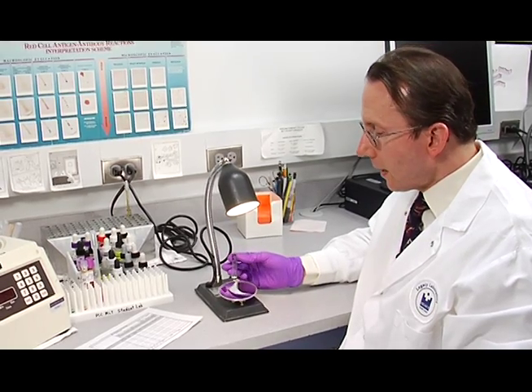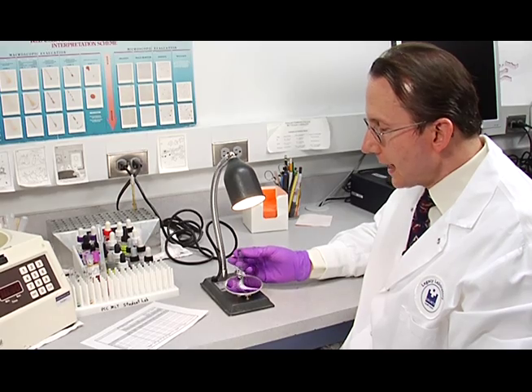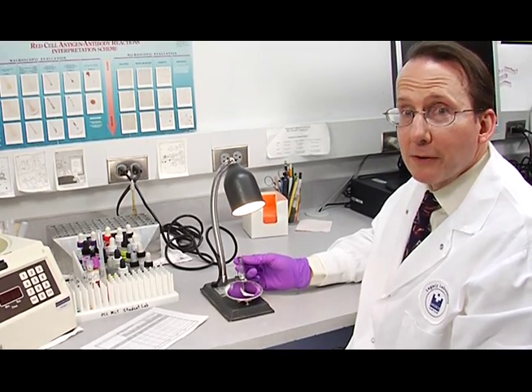So the results of our DU testing on our D-tube shows negative. Now we need to go over to the microscope and confirm it microscopically.